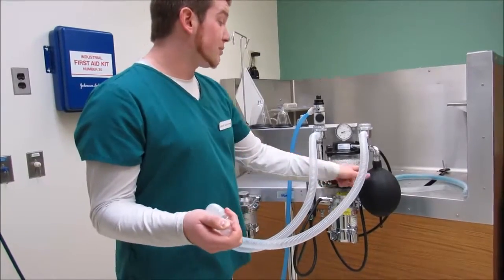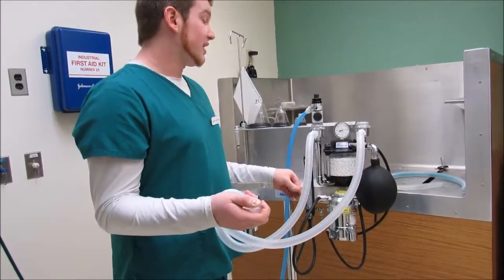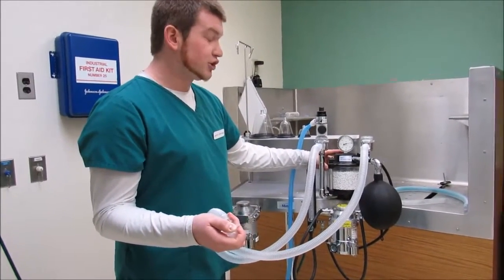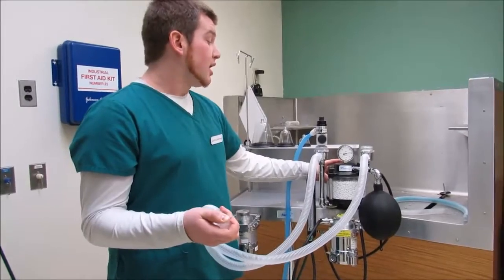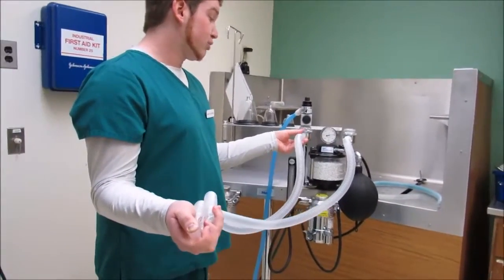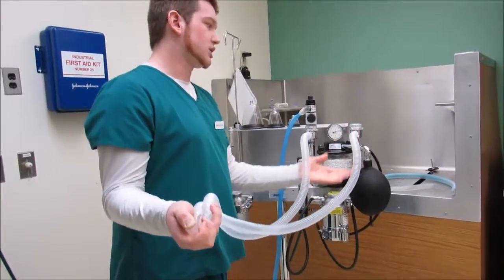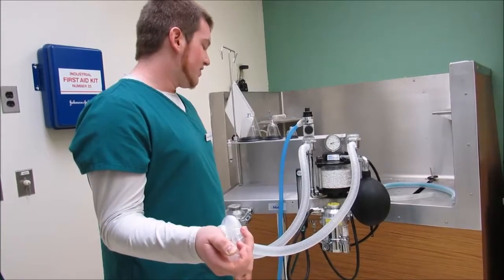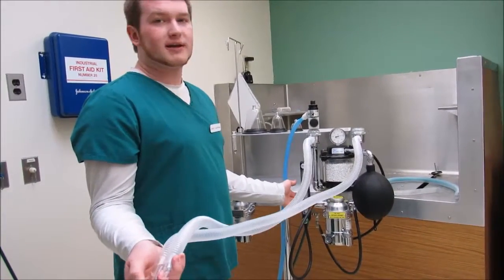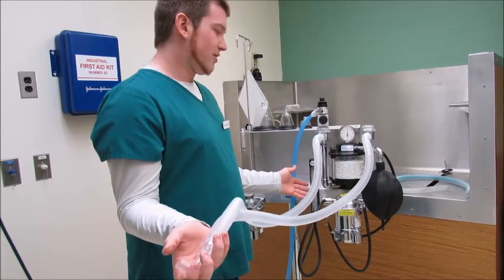So there's no leak in your bag, which is a common spot, whether it could be a hole in it or something like that. And that means that my CO2 canister is properly seated, which is also a very important spot. And that also means that the gaskets for the breathing systems and how they're placed, because they're hand tightened, are tight enough. And that the flow meter is functioning properly. Okay, so I'm going to let go since we know that part works.